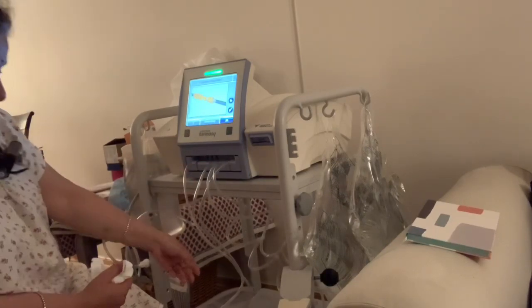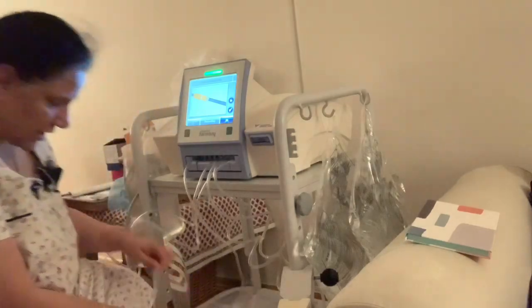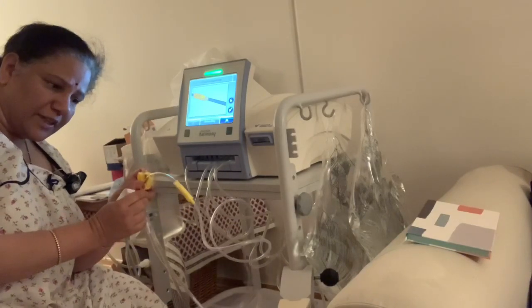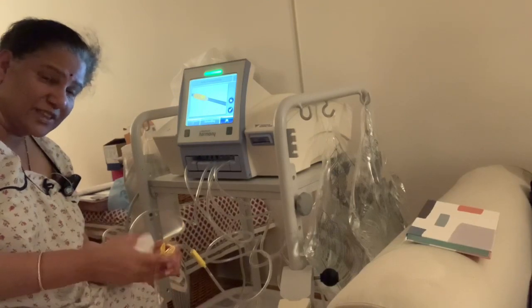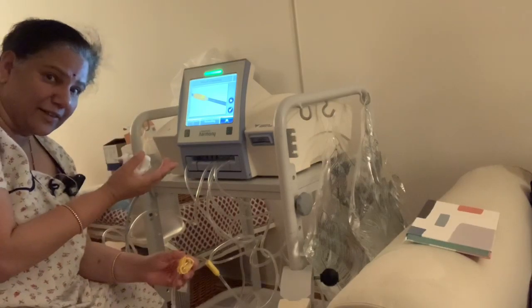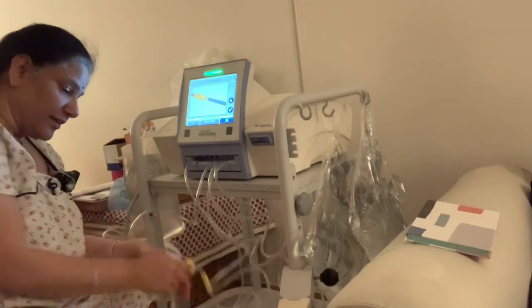It tells me to join the yellow ones — the empty bags that are open but locked. When they're full I can close them so fluid doesn't flow back out. That kind of happened once, and we had to empty four bags instead of two.